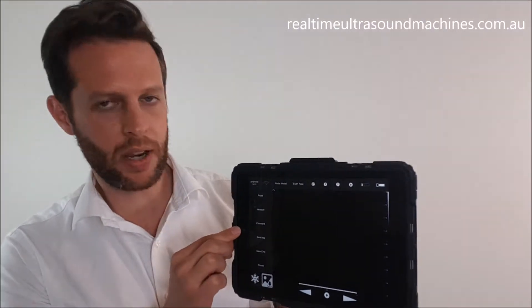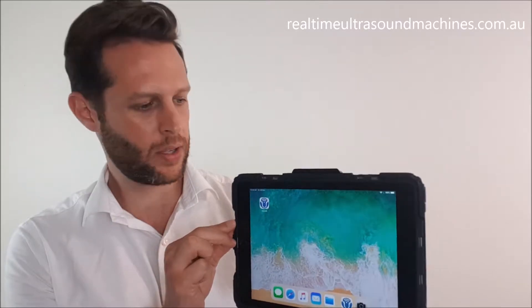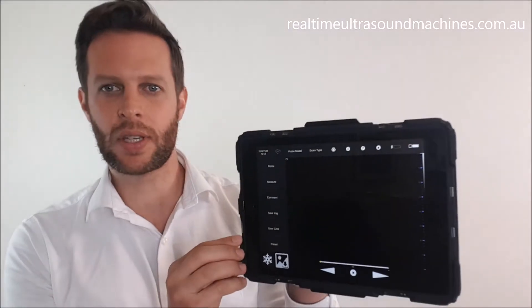Next, make sure you've got this app on your tablet. You can go to the App Store and download the SonoIQ app, which is free. Just search SonoIQ - that's S-O-N-O-I-Q - and once you have it, open it up and you'll see this application on your tablet.